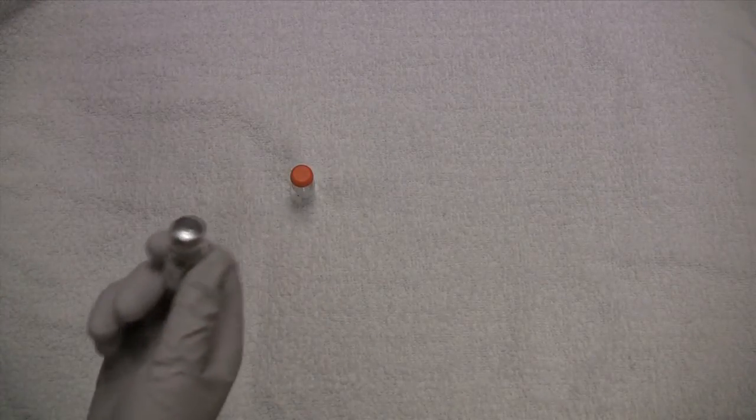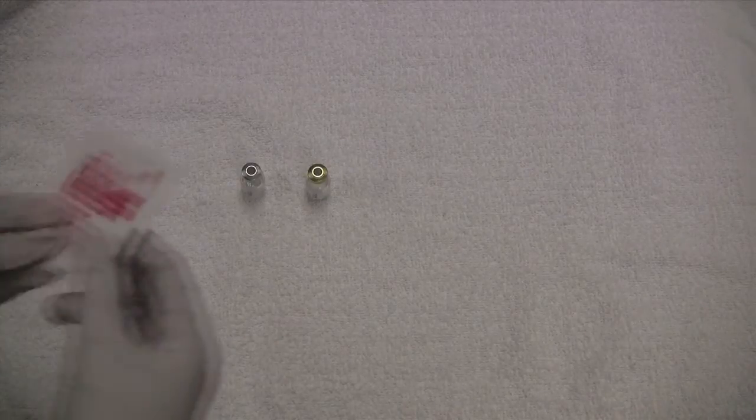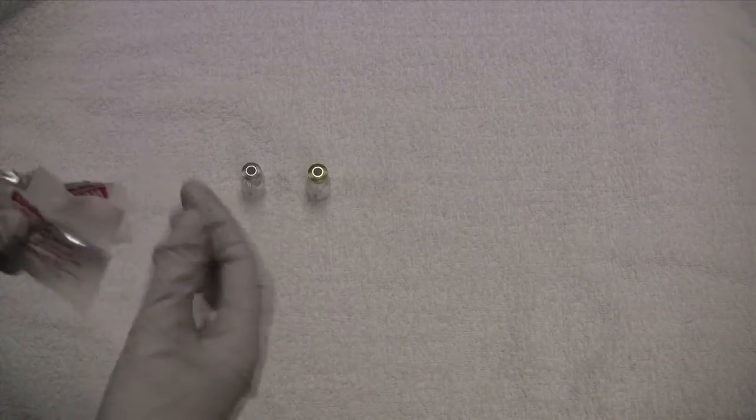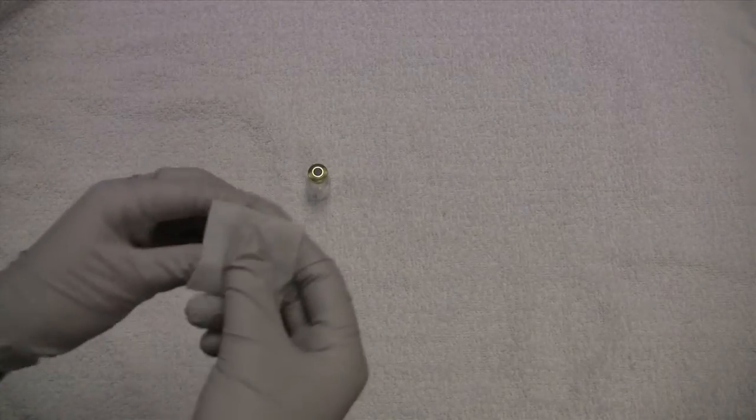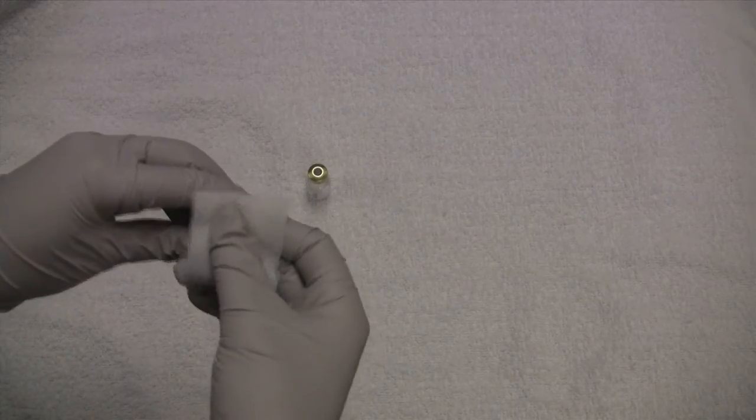Next we can pull off the tops. I have my alcohol wipe here. Even though these should be clean, I'm going to go ahead and alcohol wipe the tops anyways.